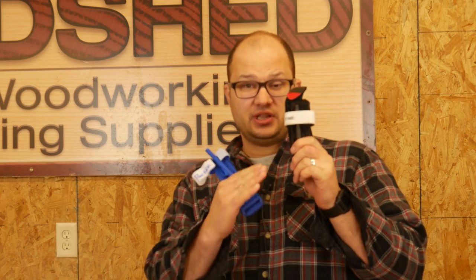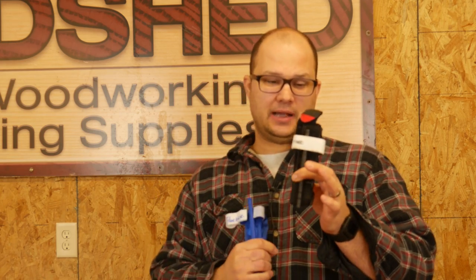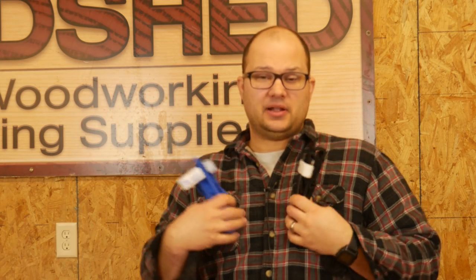I preserve the life of my good tourniquets. There's a line of theory that you should never use your real tourniquet except in real life and only use it once, because otherwise it destroys the fibers and breaks down the tension. That's fine — if you're in that camp, you do you. But I will say I will use my practice tourniquets to continue to aid in practicing. So this is just a public service announcement: buy those cheap counterfeit tourniquets and use them for practice. Do brave deeds and endure.